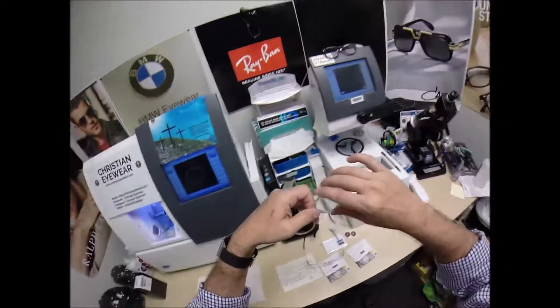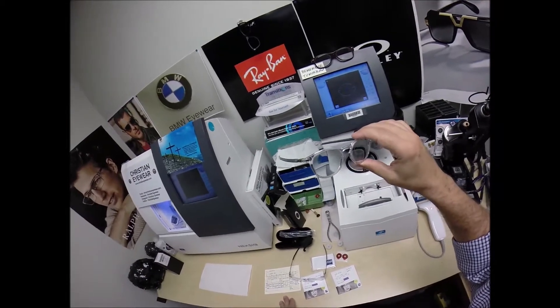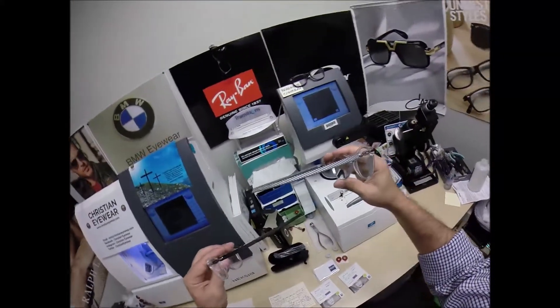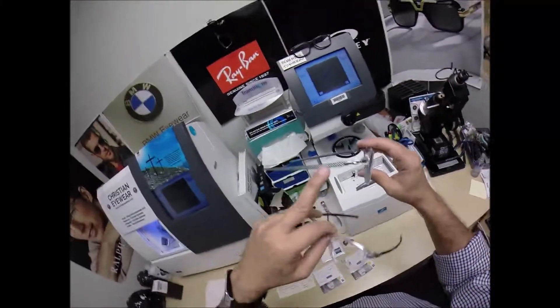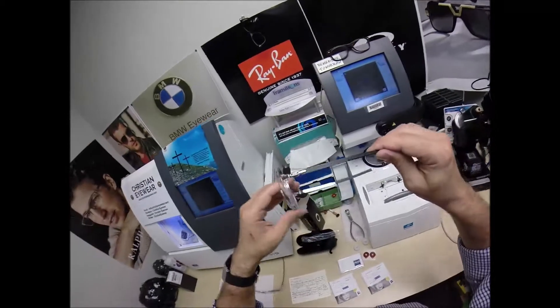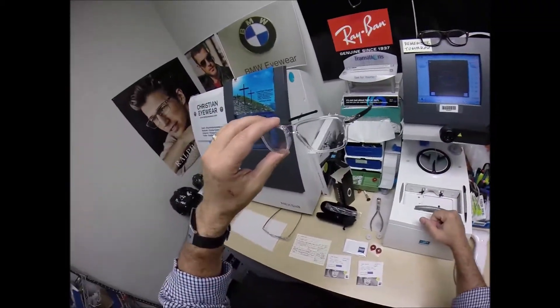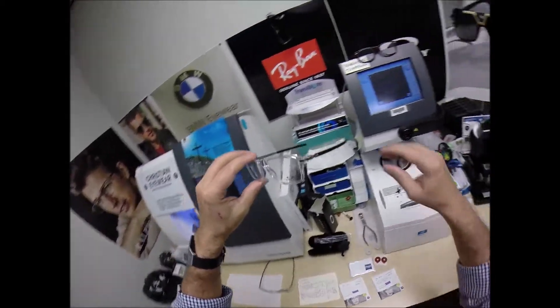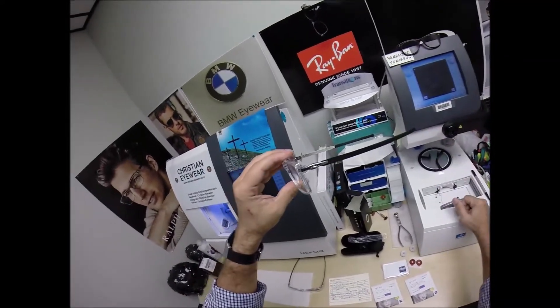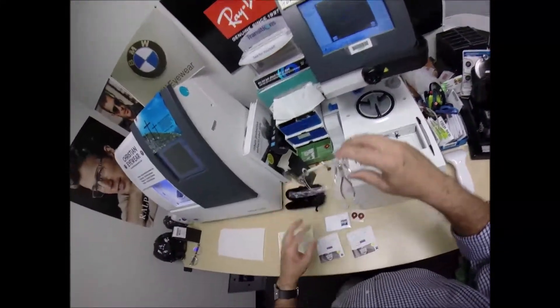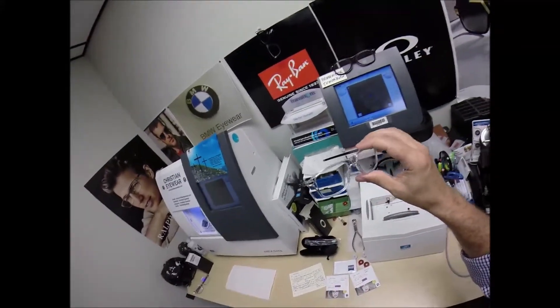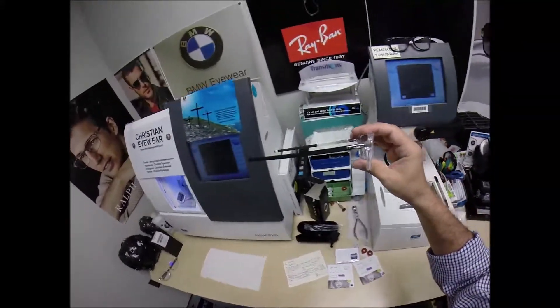For the longest time, I wore this polish clear, which is the 8149 Pitchman Carbon. I really like that black and crystal combination. The reason why I got this is because I have some silver wisdom highlights coming into my black hair. Making free prescription lenses for Oakley frames, that is in my wheelhouse. So let me get to work.